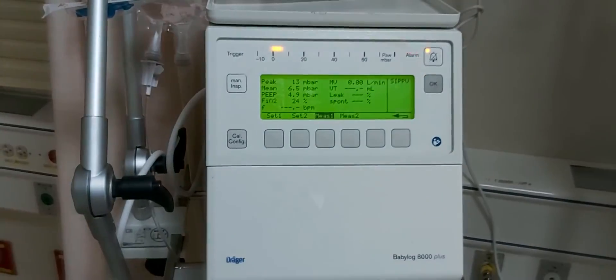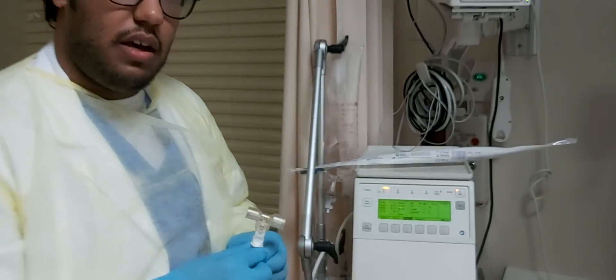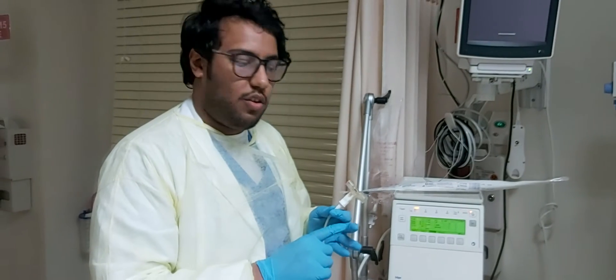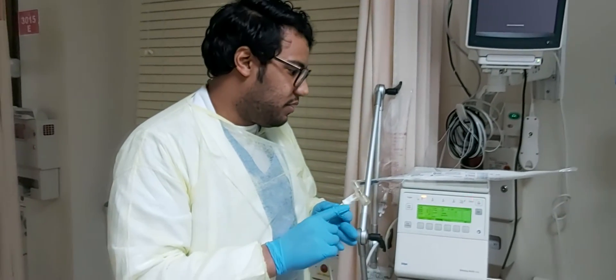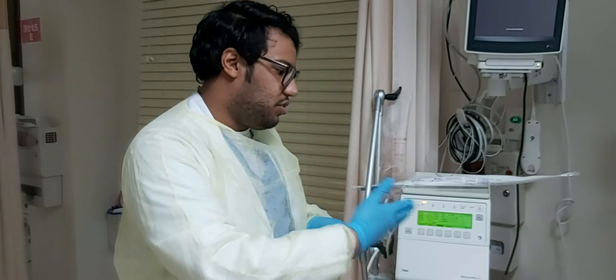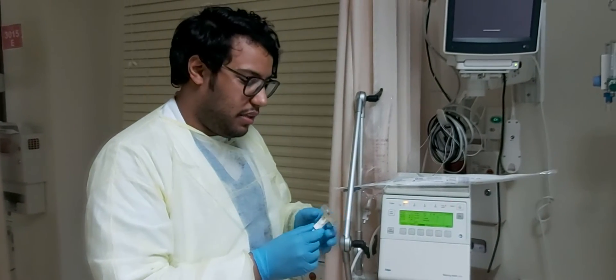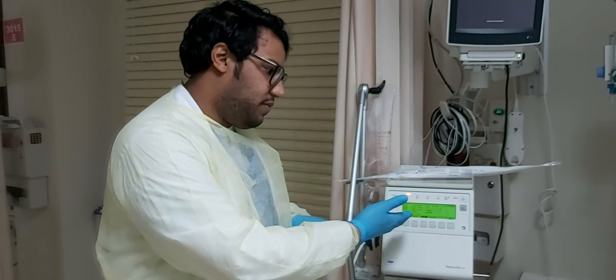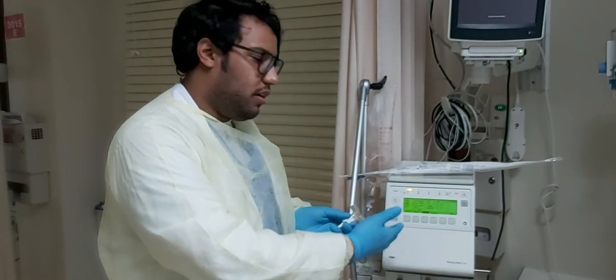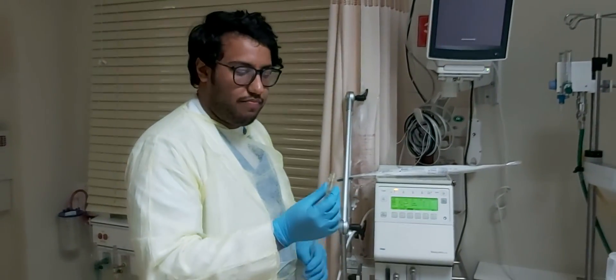One of the benefits of the flow sensor is it tells us if there is any kind of apnea, if there is an obstruction, and if there is any problem between the patient and the mechanical ventilation. And after the message that appears on the screen, we are going to troubleshoot the problem.